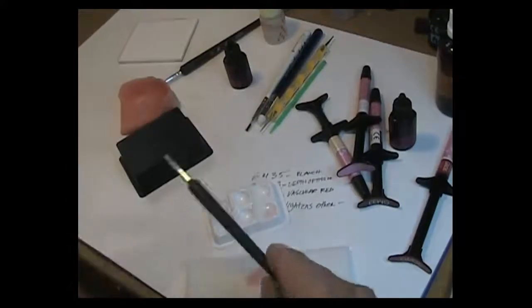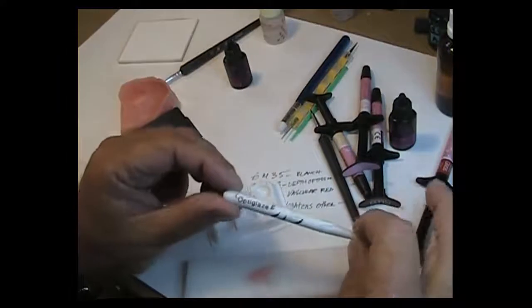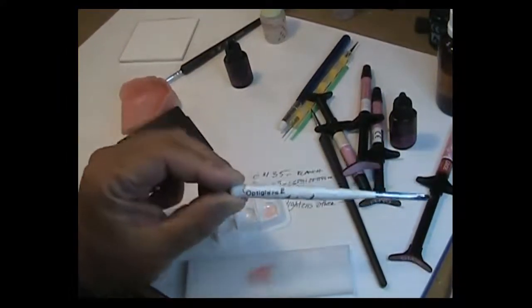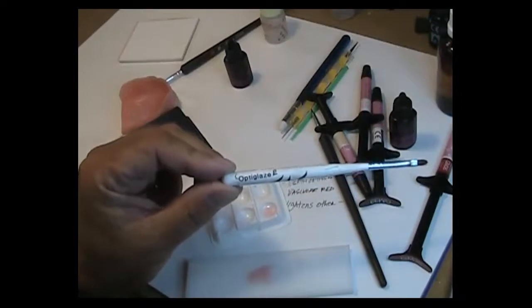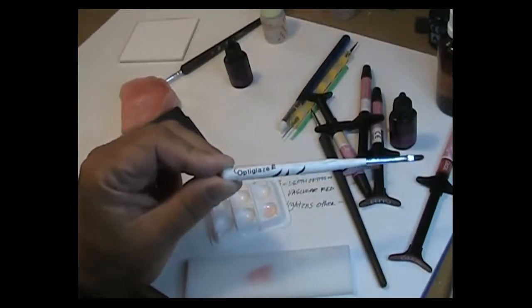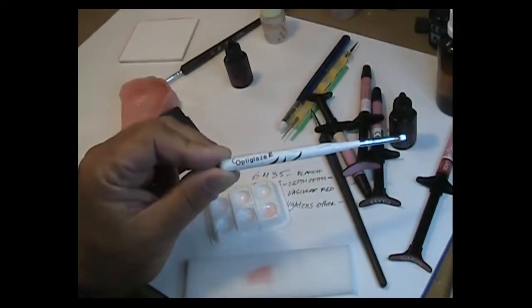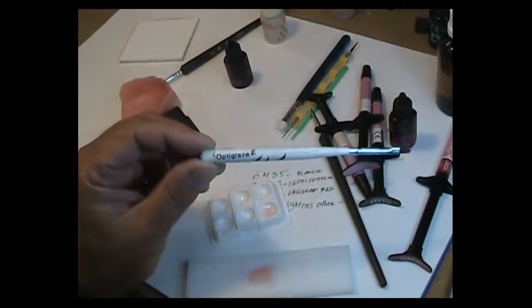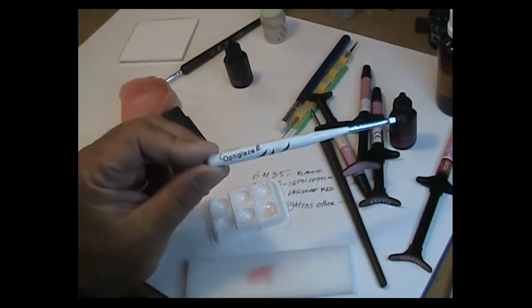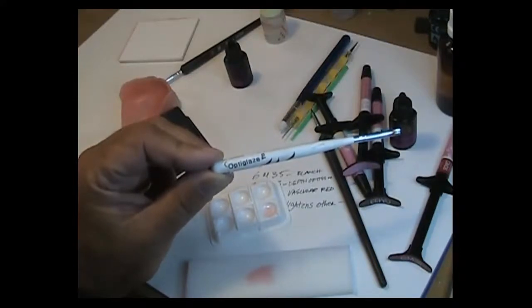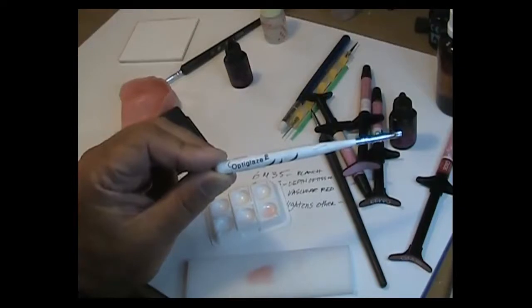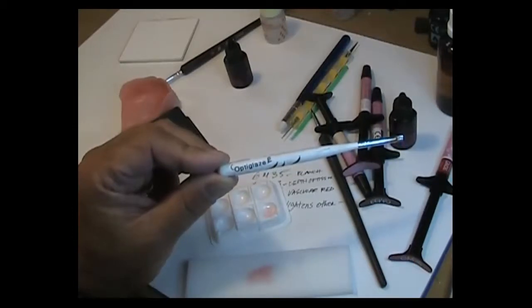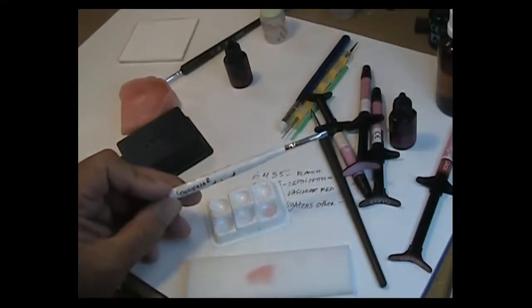A couple other little things worth mentioning is that on any of your brushes where you're using Opti Glaze and you're using composite primer and using different types of material, it would behoove you to mark your brushes according to the products that you're using and not to cross contaminate your brushes. Because if you mix Opti Glaze with composite primer or Opti Glaze with your GMs, your gum modifiers, or if you get air barrier mixed into it, not good. So what you should do is you should always mark your brushes. And I again I use like a little Brother label maker which identifies the brush and it's used solely for that single purpose and never for anything else. This will keep you from having curing problems, streaking in your material and so forth. So again, make sure that you identify what brushes you use for what materials and only use them for those specific materials. And when you first start working with these materials, don't grab brushes you've been using for other things to start. Get yourself some brand new brushes, mark them, and then just use them strictly for those purposes.